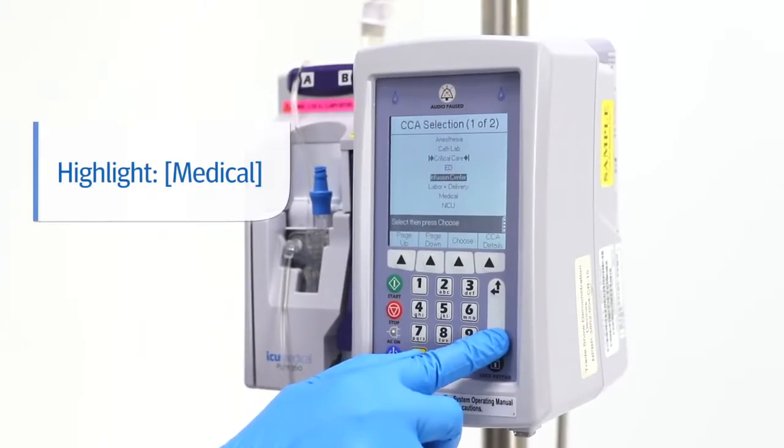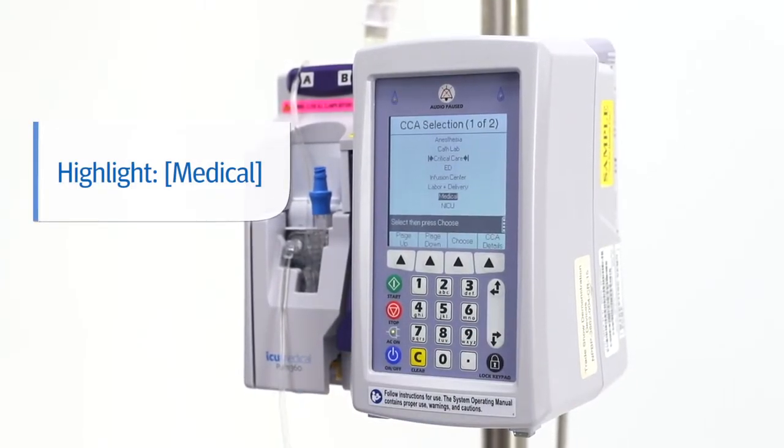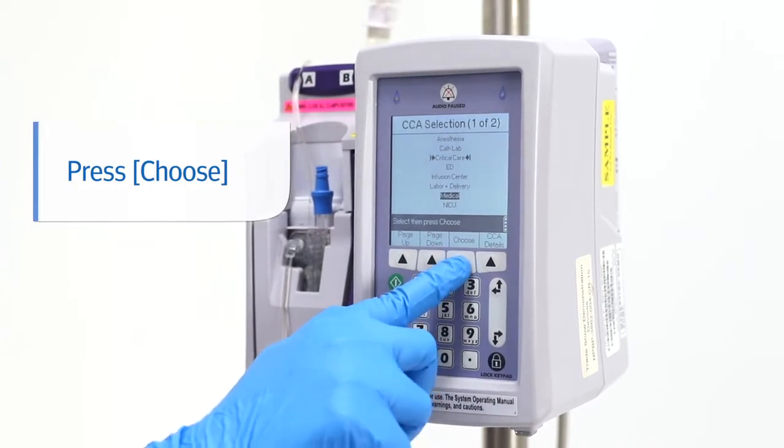Next, using the select down arrow, highlight Medical CCA. Then press Choose.